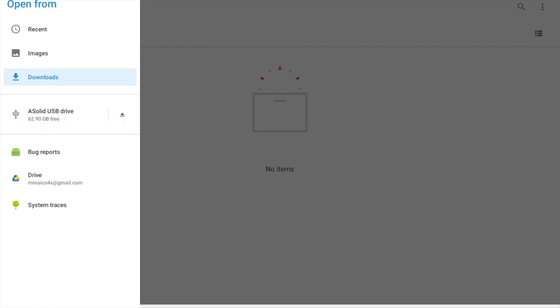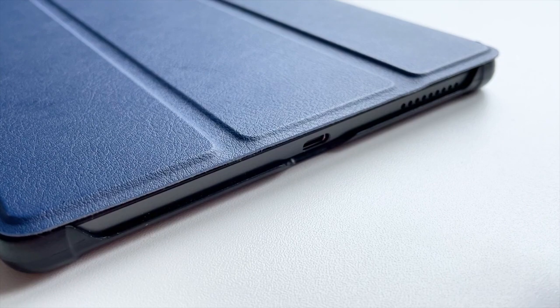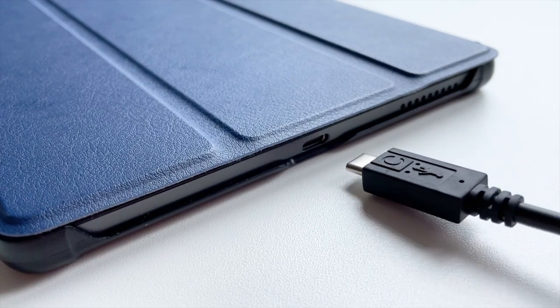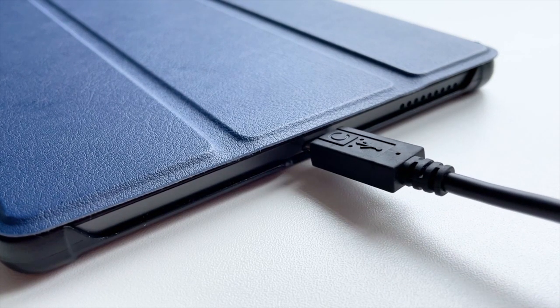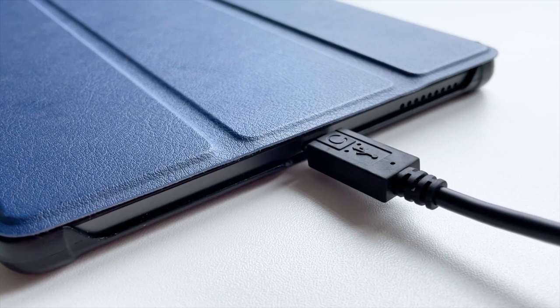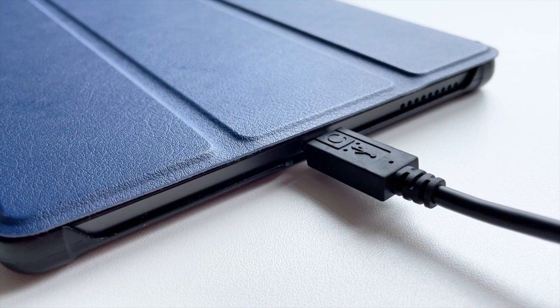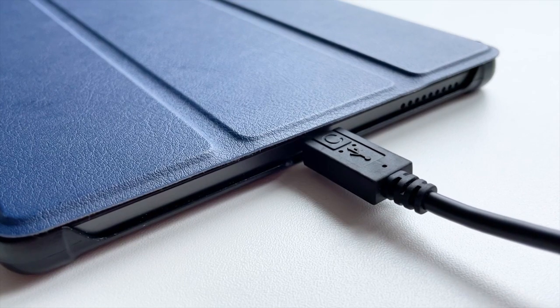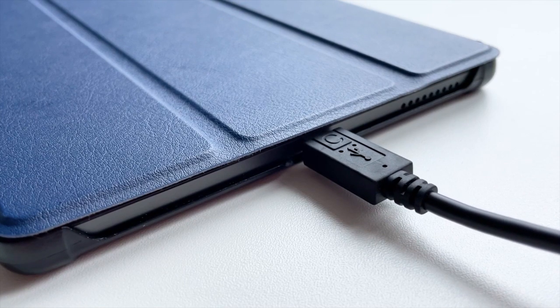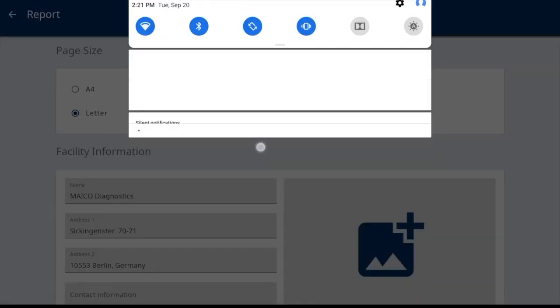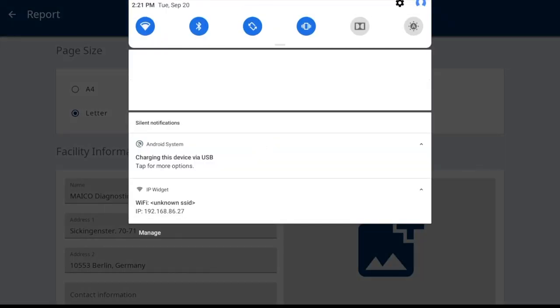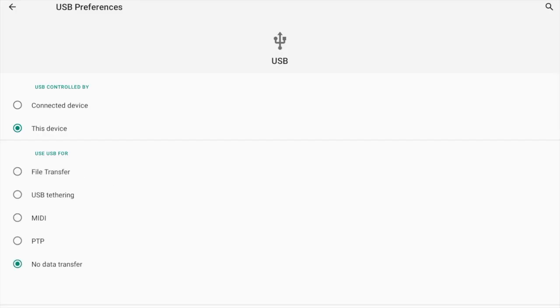Option three is by connecting the supplied USB cord to the computer and tablet. This is only available for Windows based PCs. The tablet must be prepared for file transfer. To do this, pull the menu down from the top with the hold and slide motion. The Android quick settings menu will display. Locate the setting charging this device via USB, tap for more options. Once opened, no data transfer will be selected. Select file transfer, then select back.